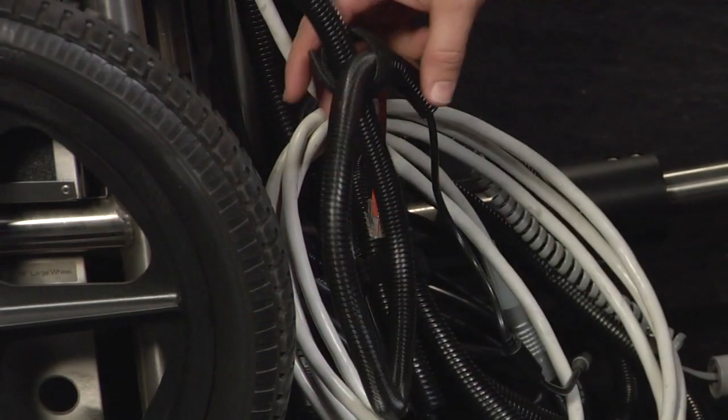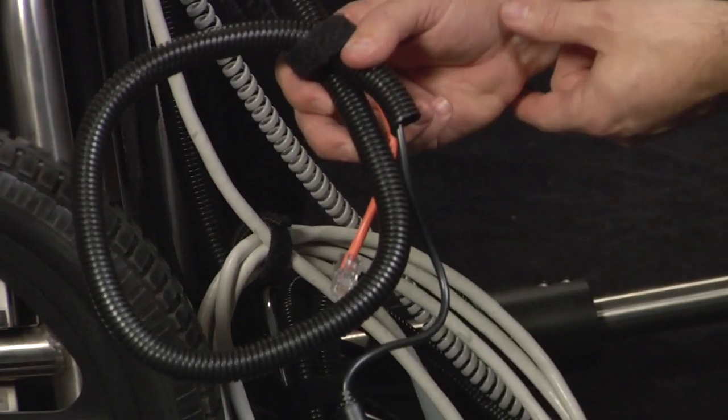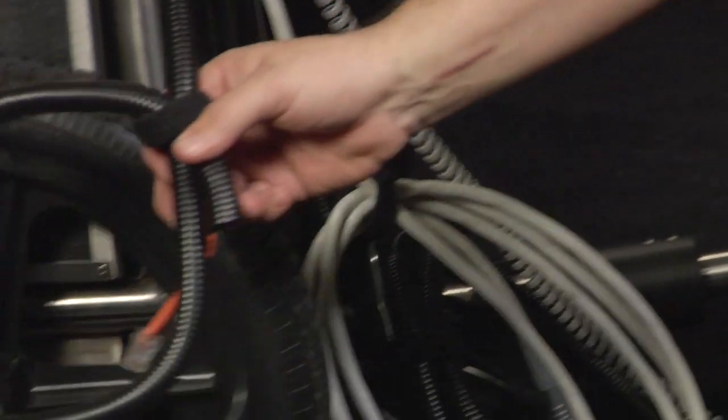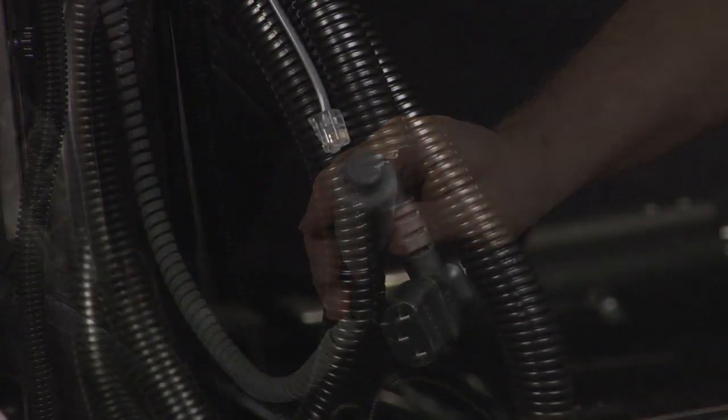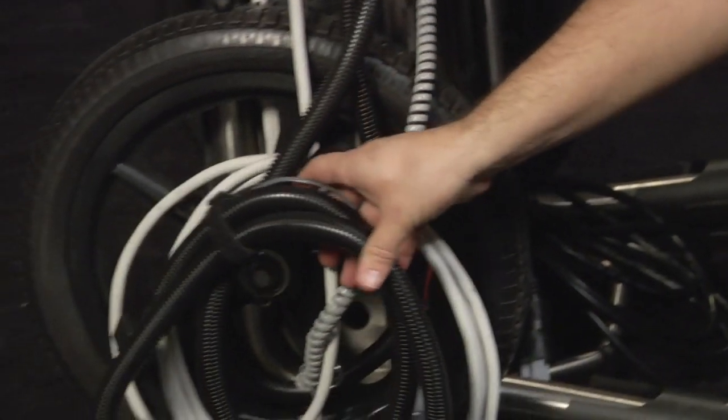There will be five cable bundles exiting out of the top of the lower electrical control box: computer connection bundle, IP panel connection cord, exposure cord with switch, X-ray tube head communication bundle, and electrical power cord.